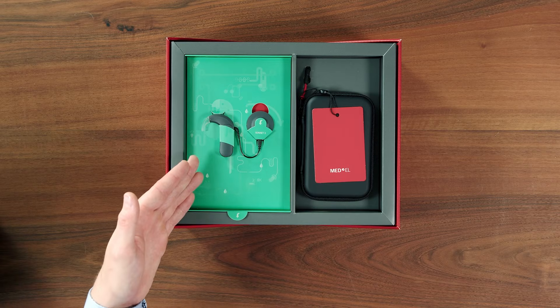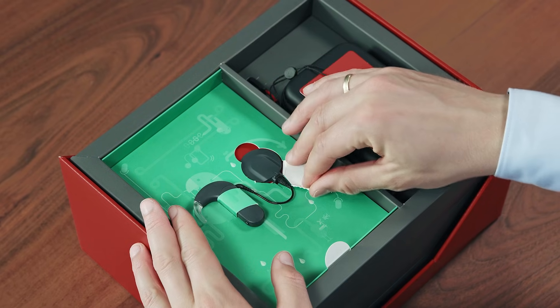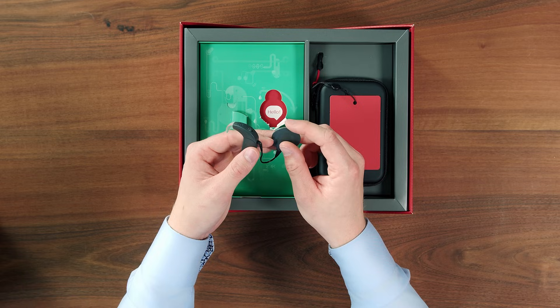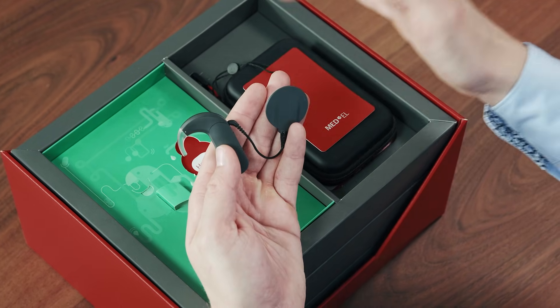As you can see, it is small and has a comfortable ergonomic design. There is also a new touchkey. Your audiologist can set up the touchkey to either activate standby mode or to change programs with the press of a button.